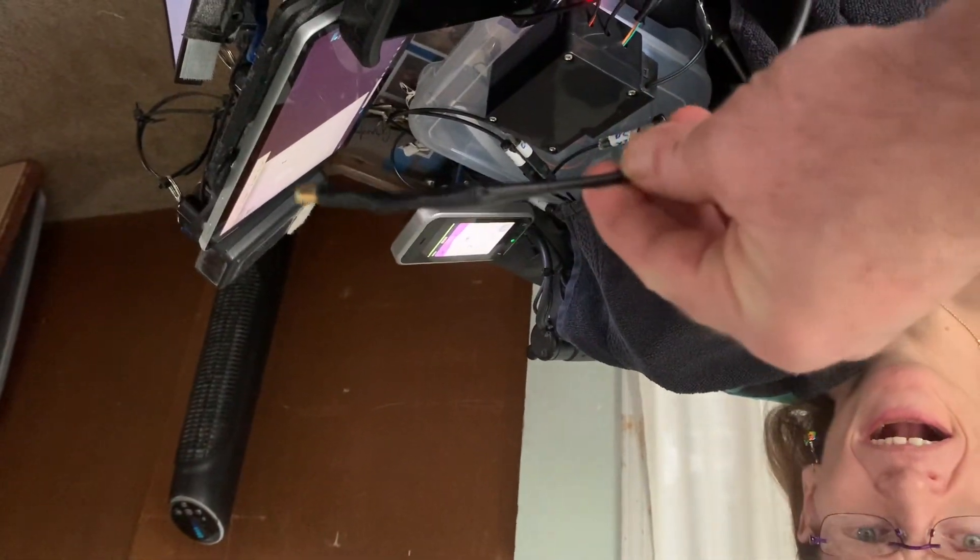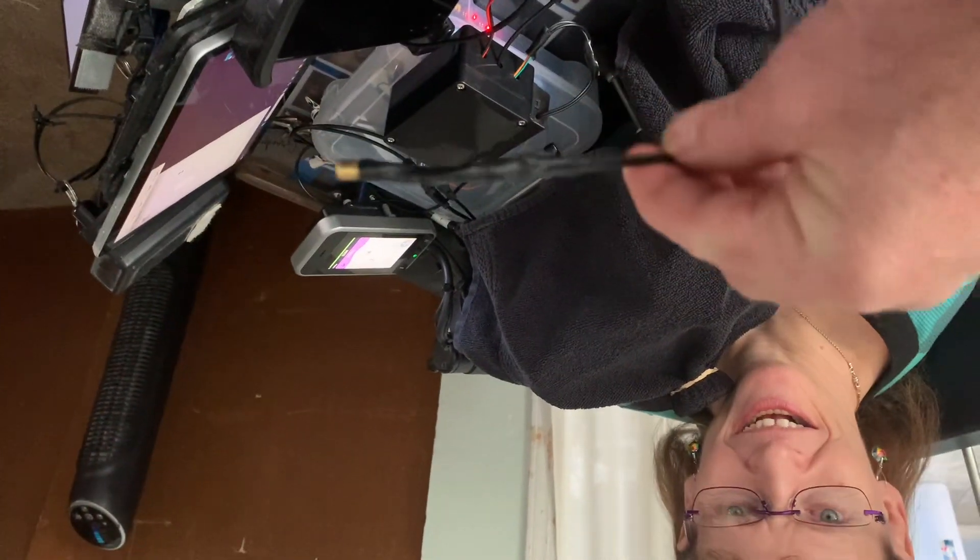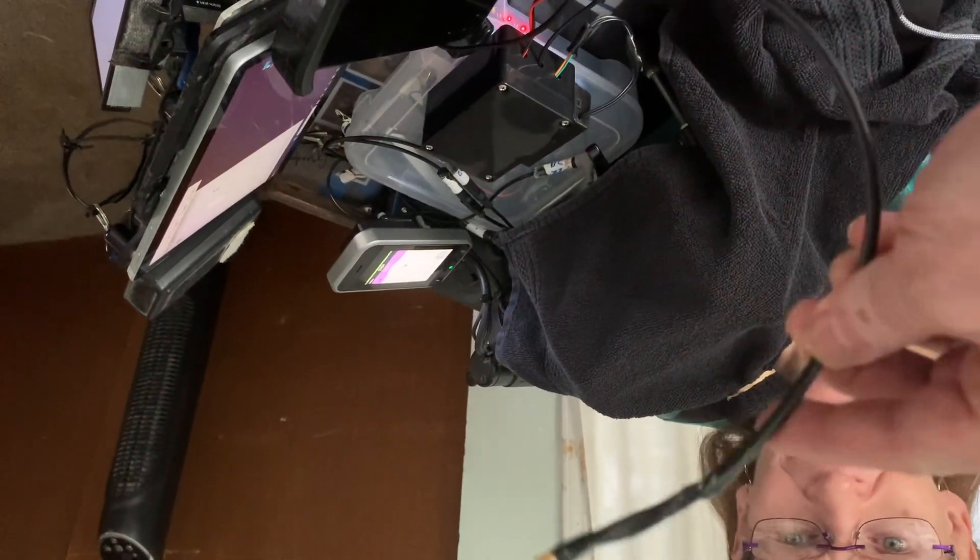With any switch you can go on and off — this is all there is to the laser. It's pretty much just a wire that you can mount anywhere you want. I did it behind my ear and it worked pretty well, so you can tape it to glasses and do whatever you want.